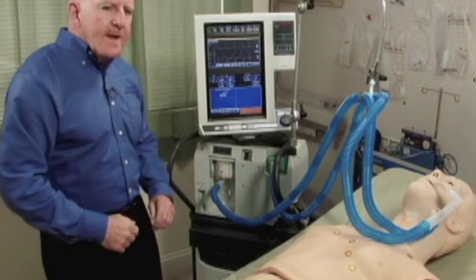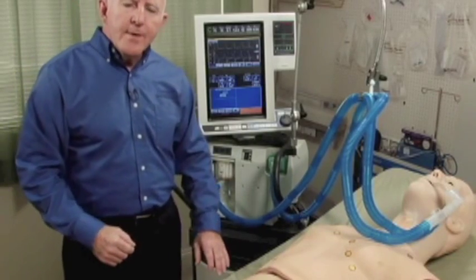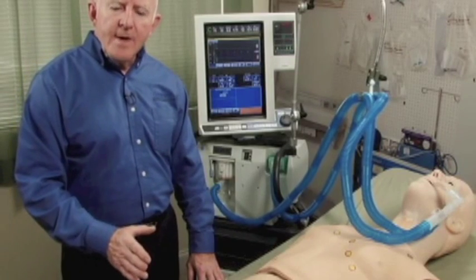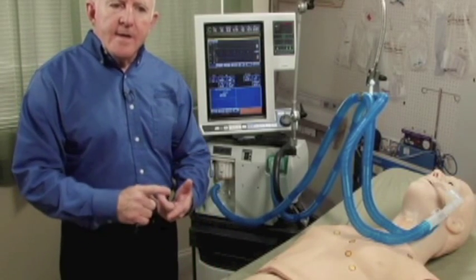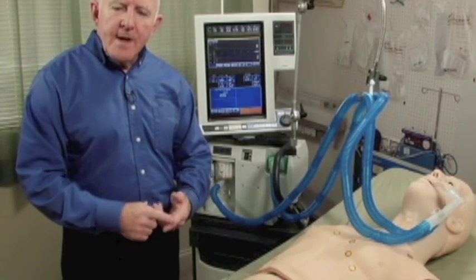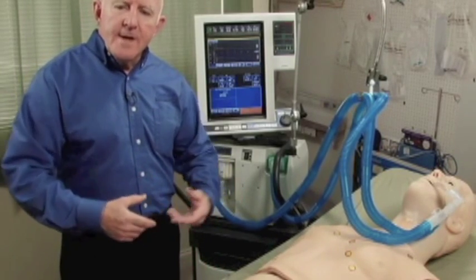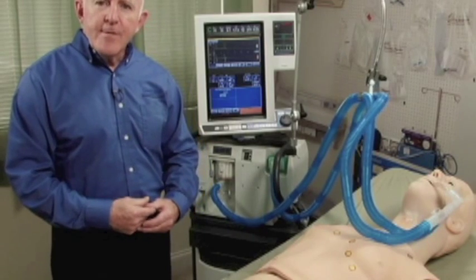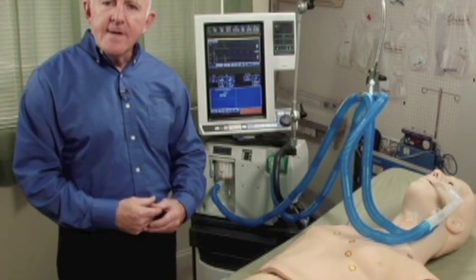Once again, it is very important to remember this can all be done while the mannequin is running, demonstrating worsening situations, making for very excellent scenarios.